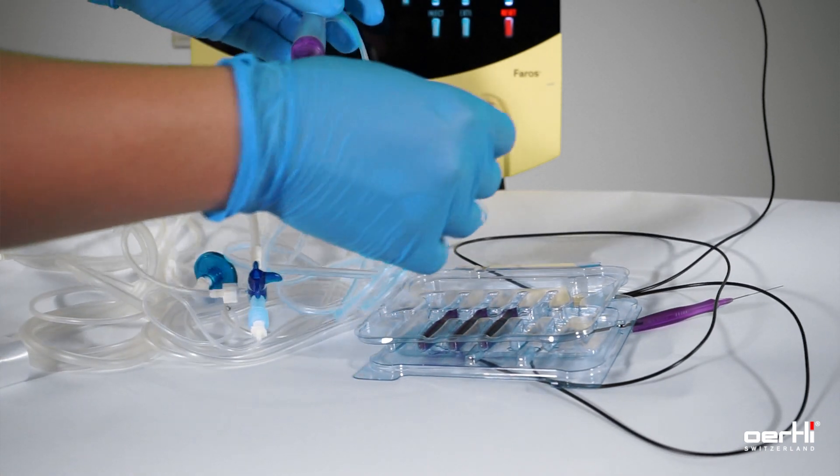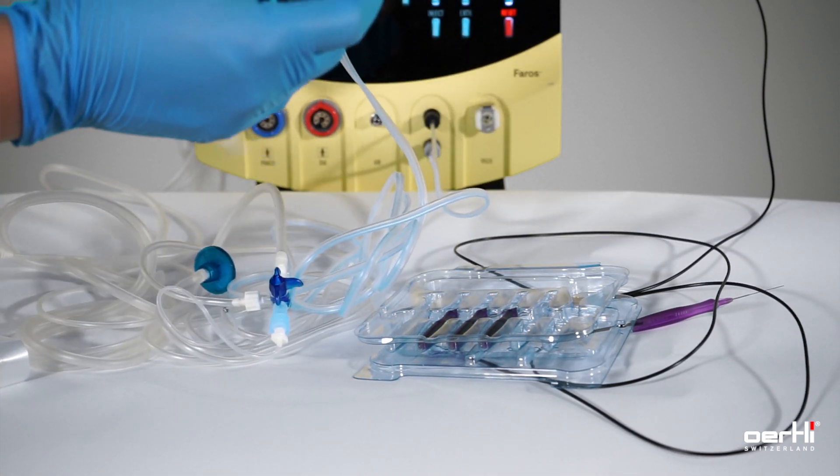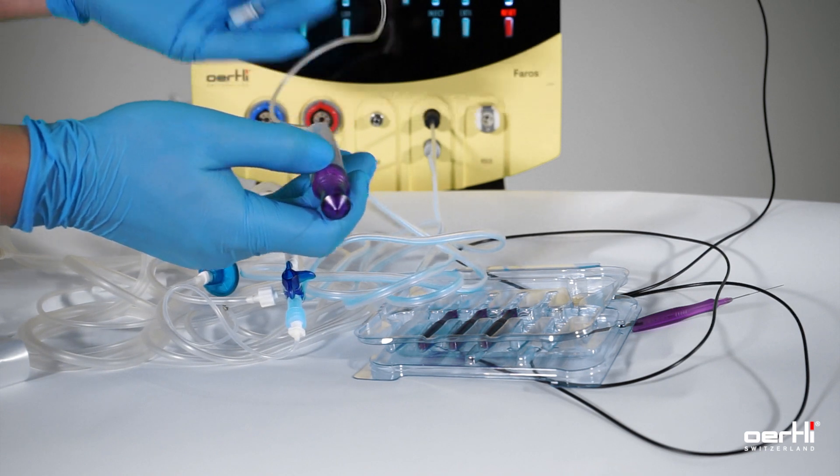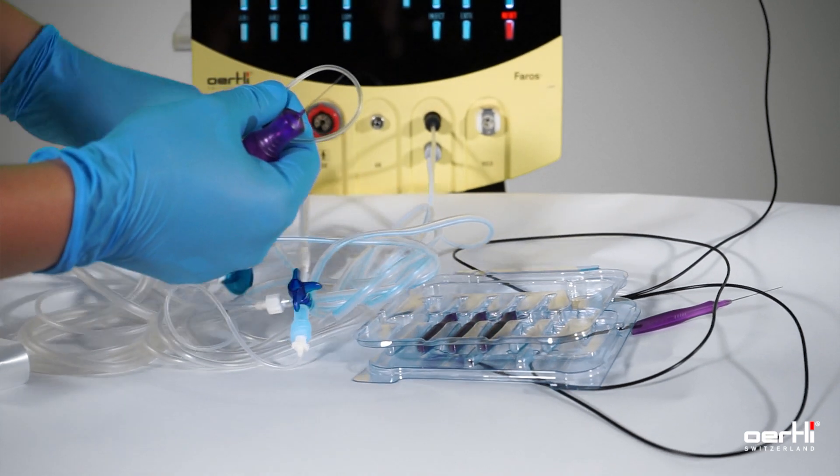The final step is the connection of the cutter with the aspiration line.